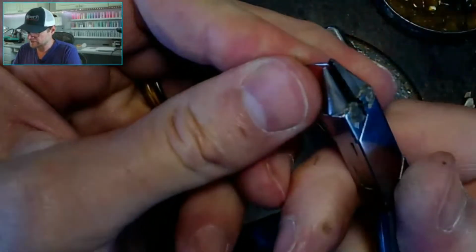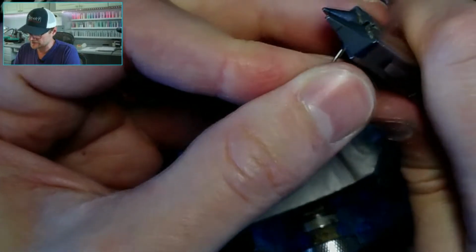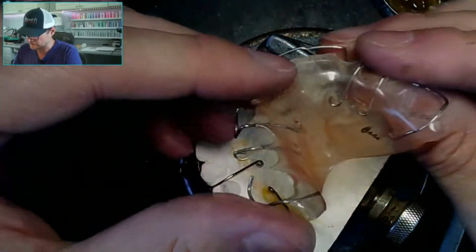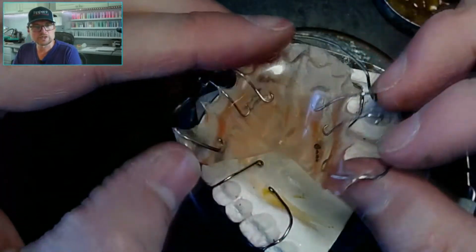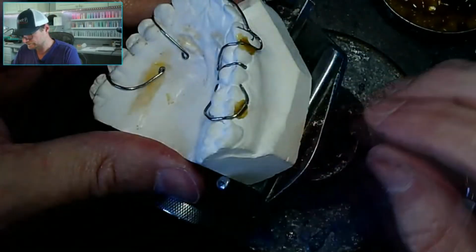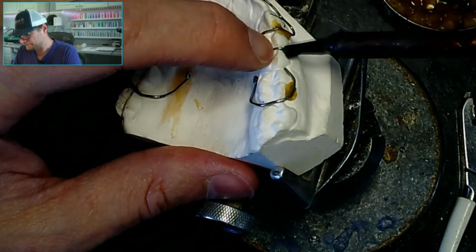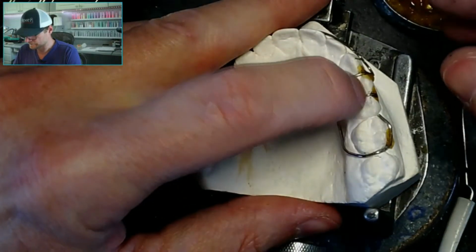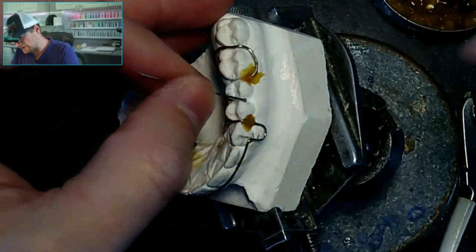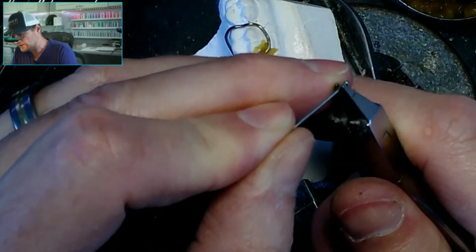Do my tag. Again, you don't have to do what I'm doing on the tag. They could be straight or zigzags, or like this practice one I did, just U's. I did U-shaped ones. There we go. Not bad. But you really got to pay attention to your instructions, because they could throw something in there that you're not expecting.